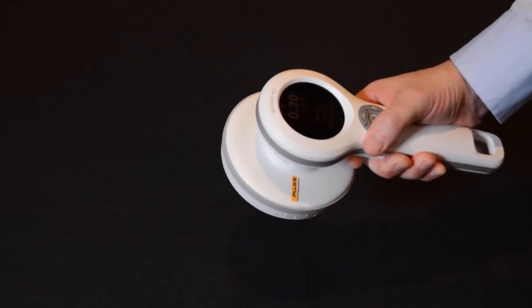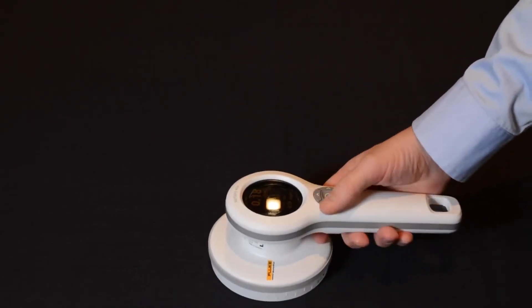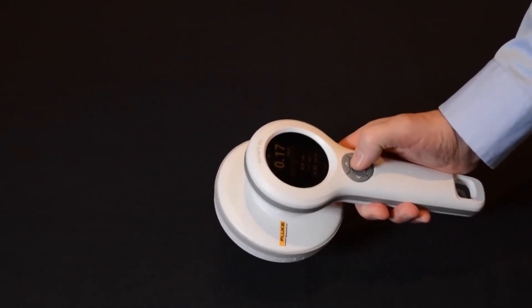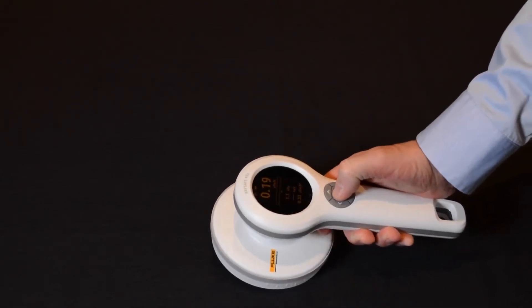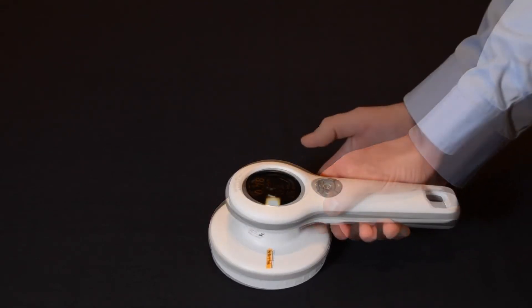The device has a built-in integrated handle on the same level as the display, so you are able to see the readings at all times. You won't cover the display with your hand, which is an issue with other models.